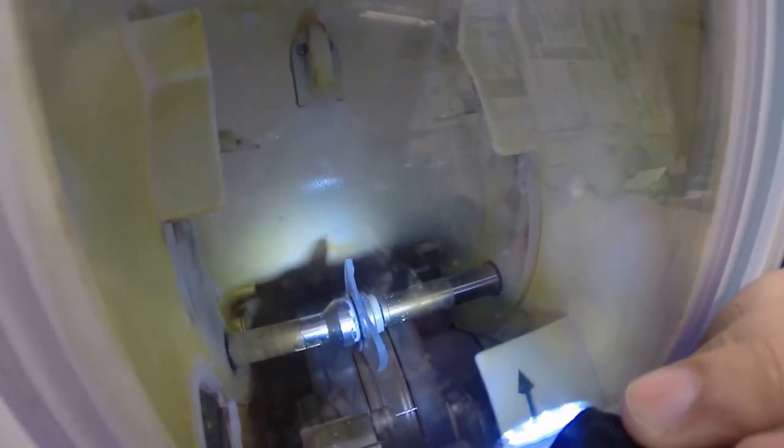Now if you notice, your lens is flat all the way around, just like a nickel. If I were to take it out now, it would stand up on the counter on its own. But it's double-checking itself to see where to place the bevel. It will soon go down onto the bevel wheel to get the knife-like bevel. A very dull knife like me, but knife-like bevel nonetheless. So now it's getting the V-shaped bevel.